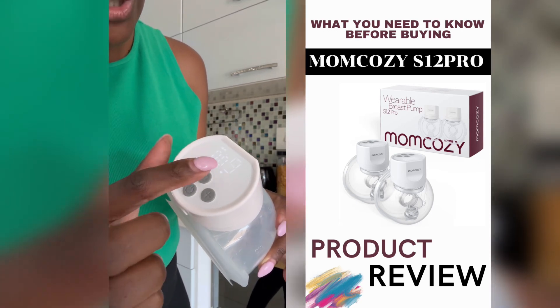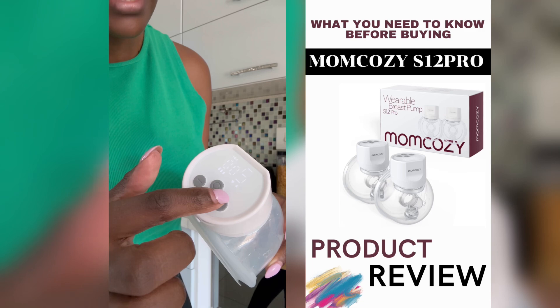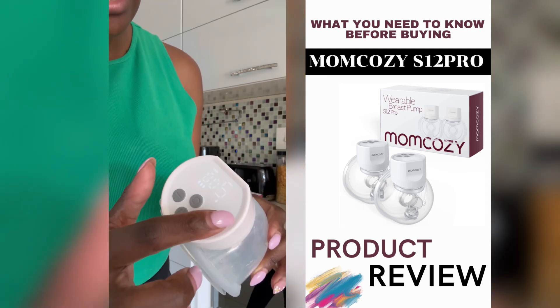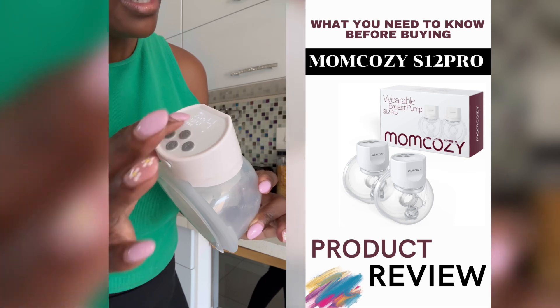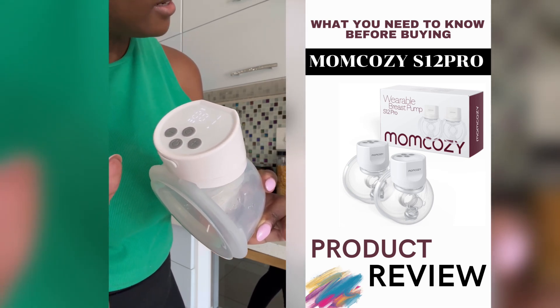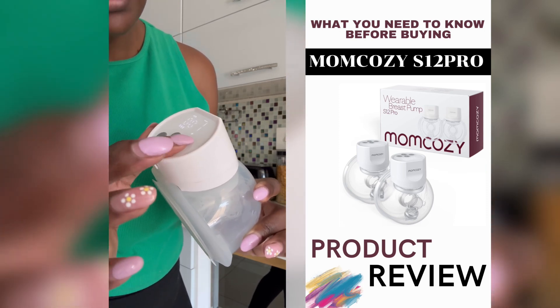So that's the first option. There's also a combined mode which does both the massage and the suction of the milk at the same time. The last option is just the suction of the milk on its own. I usually use level four — this is what that sounds like — and level one is slower, while level nine gives a very strong, deep suction.